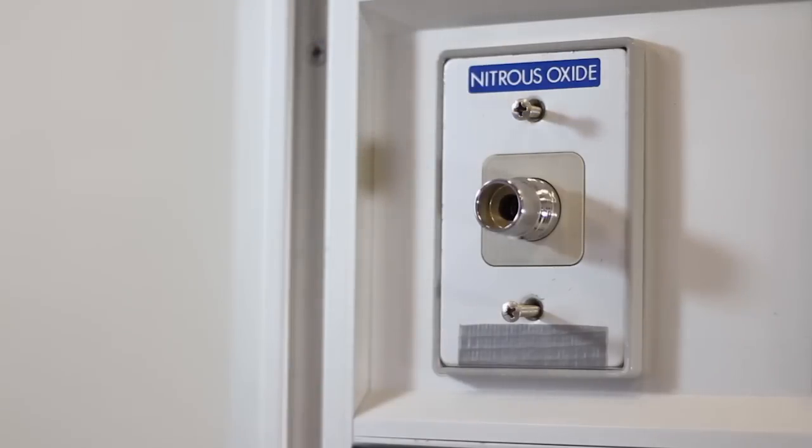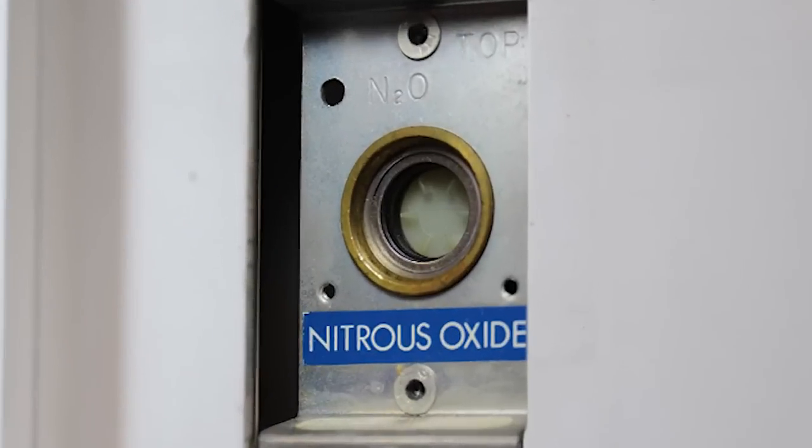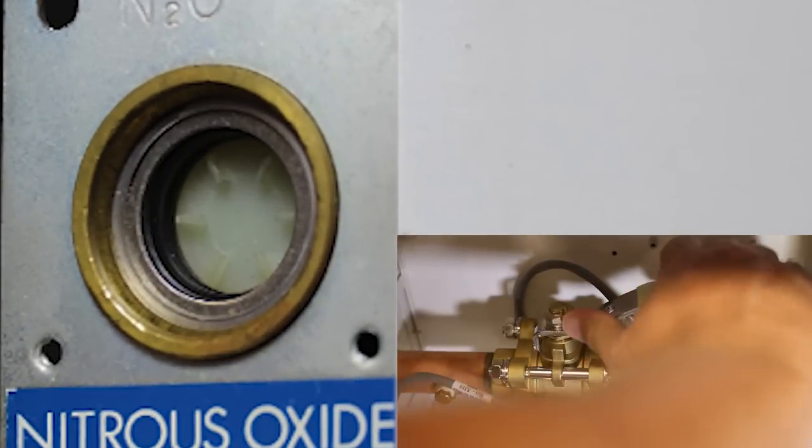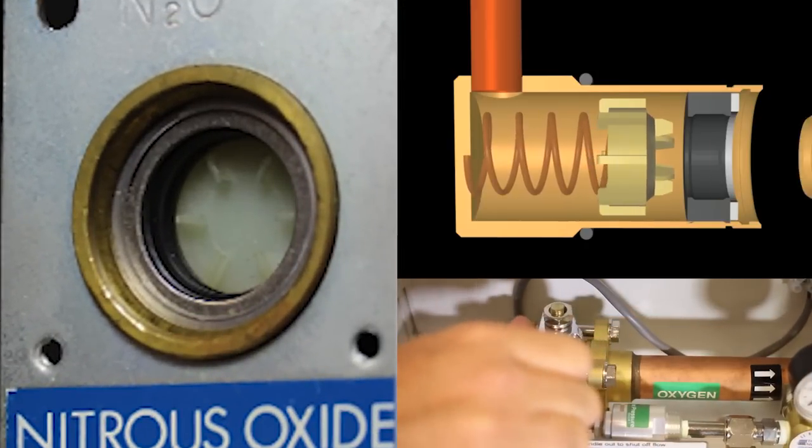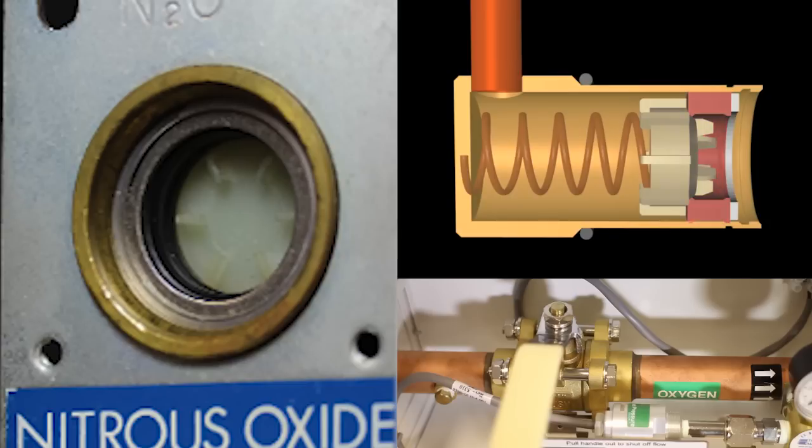Maintenance secondary check. To correct a leaking secondary seal, most outlet designs require shutting down the medical gas because the gasket also forms the seal with the secondary check.